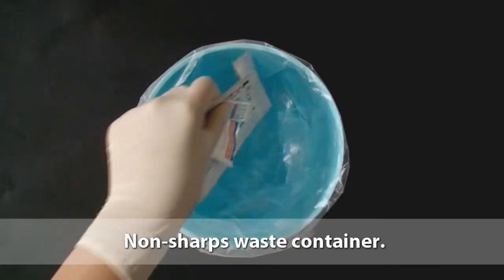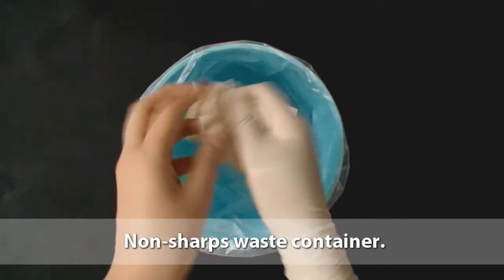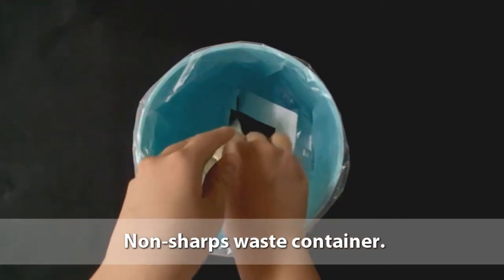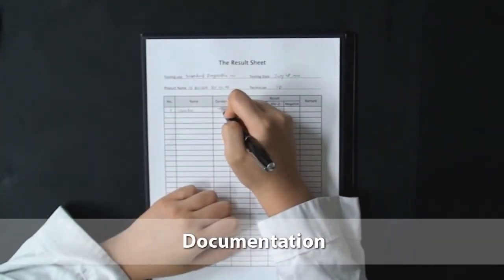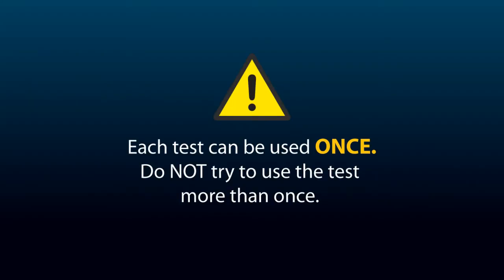Dispose of test materials such as test device, gloves, alcohol swab, desiccant, and packaging in a non-sharps waste container. Record the test results. Now remember, each test can only be used once. Do not try to use the test more than once.